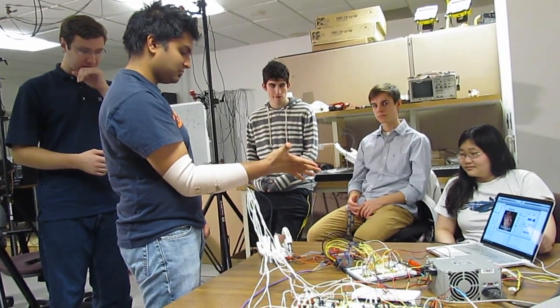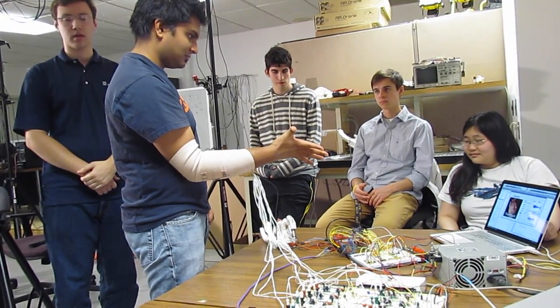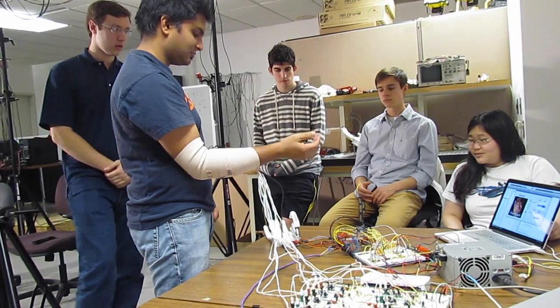Another aspect I haven't mentioned yet: proprioception, or joint position sense, is just one aspect of sensory feedback. The other aspect of sensory feedback is touch or force feedback.